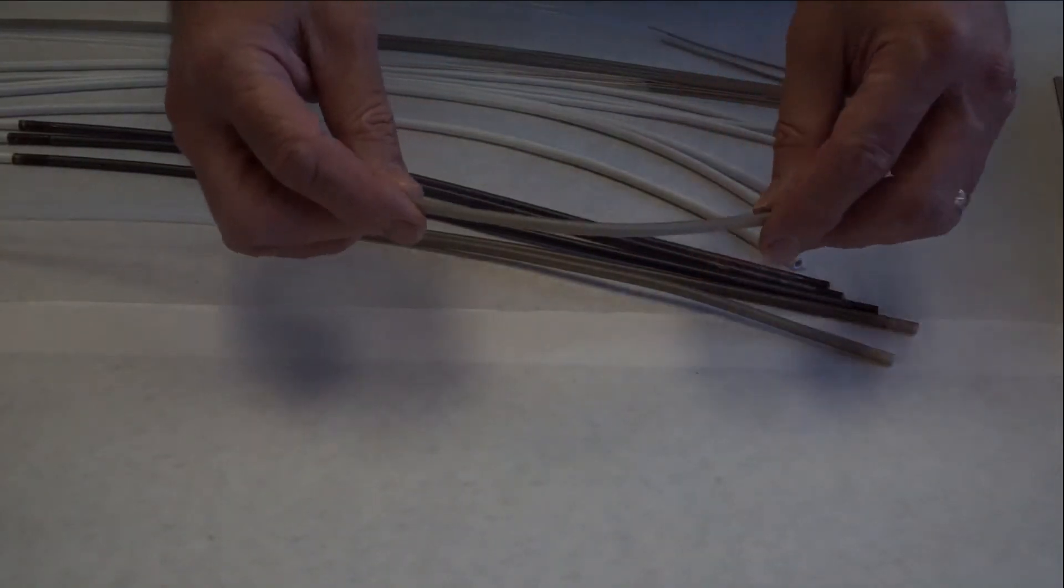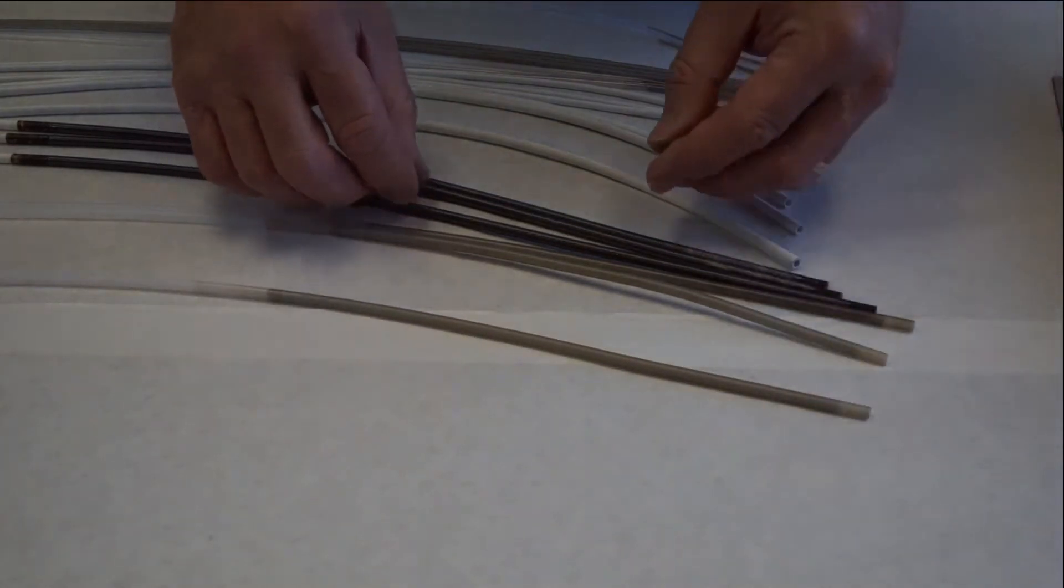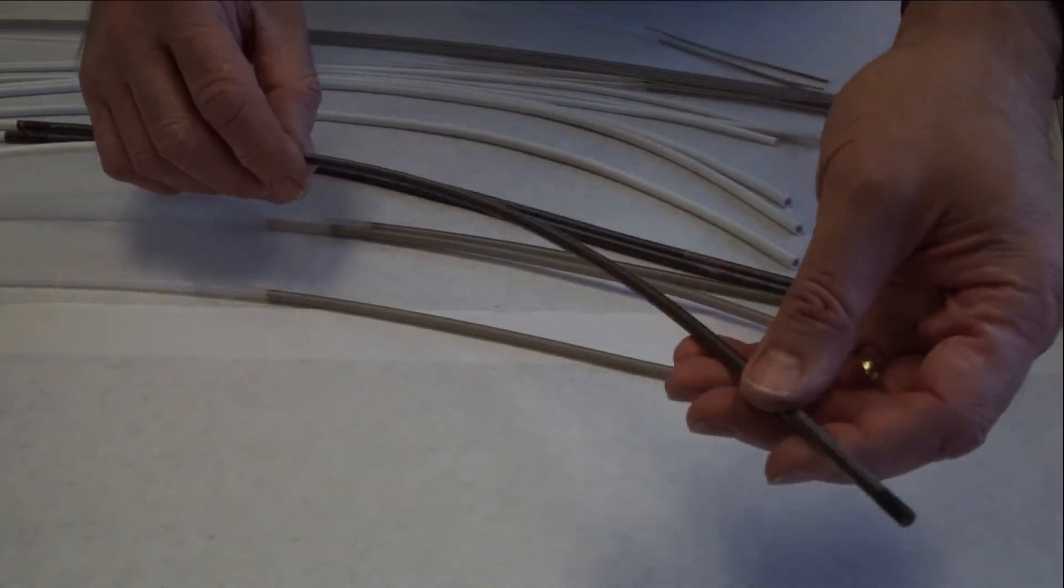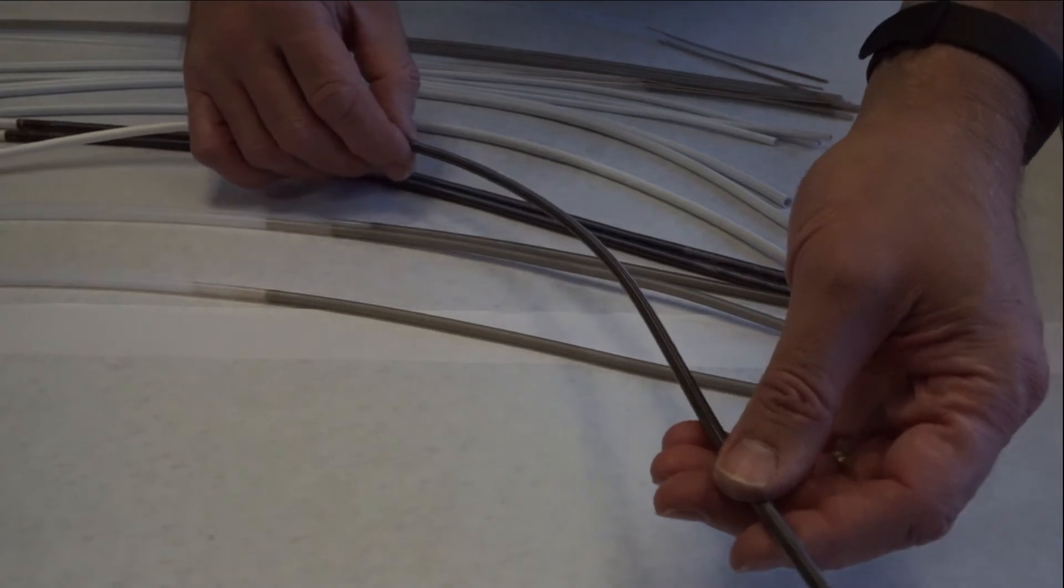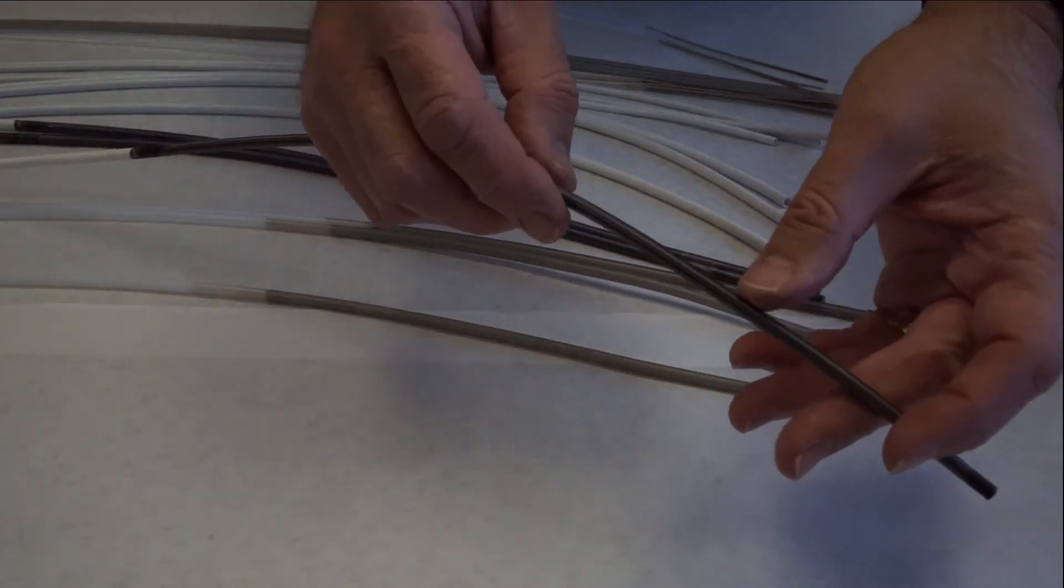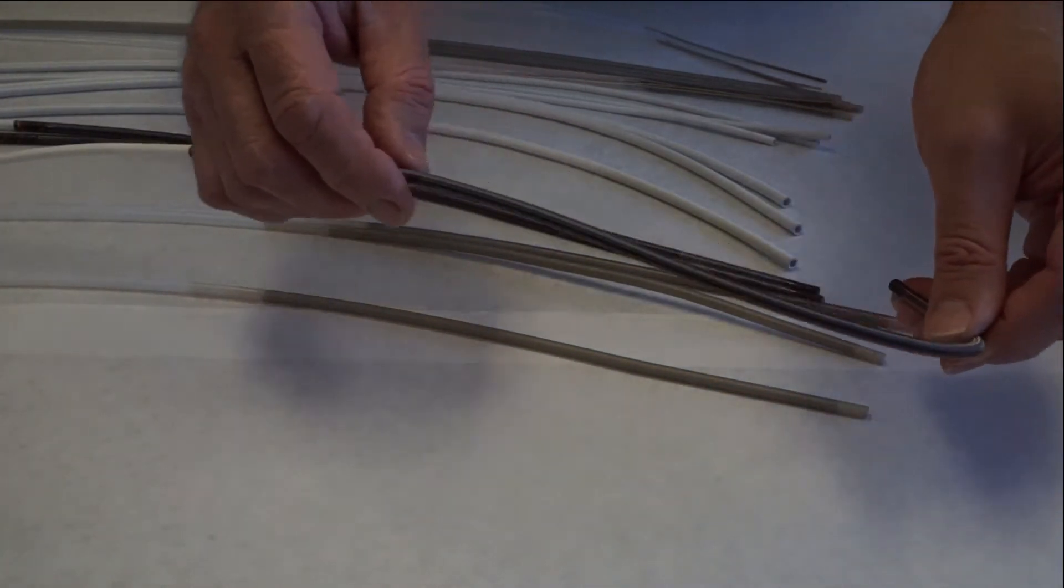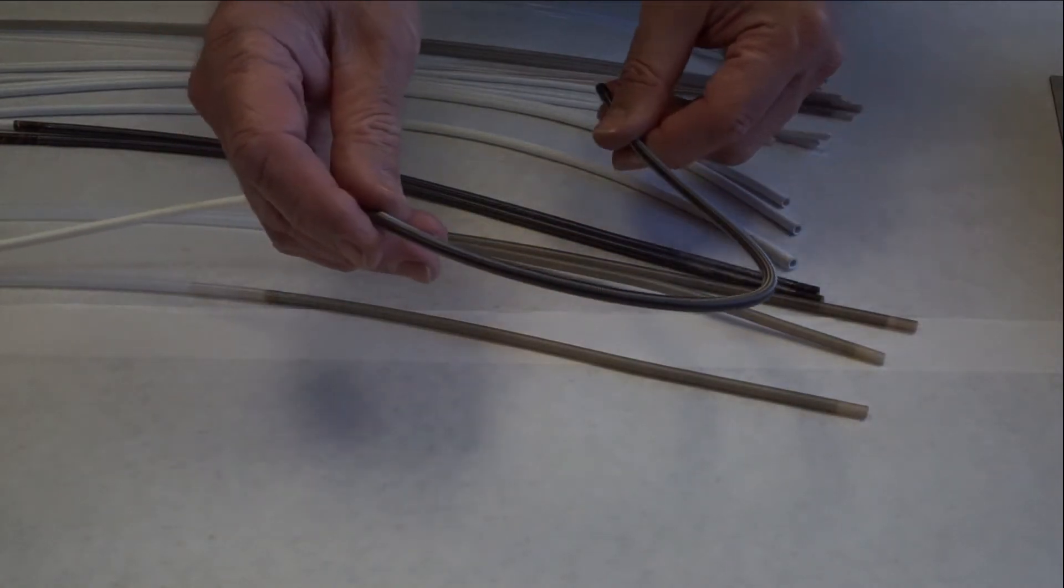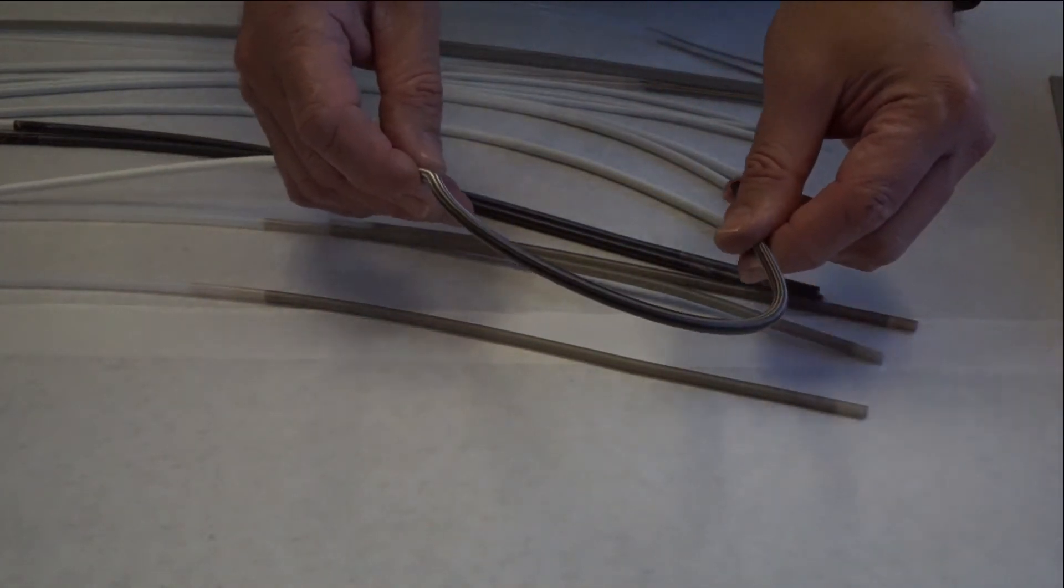Our second channel variant is our two-layer 400mm wire wrap channel. It is very similar to the flexibility of the OEM channel except it has a 400mm wire wrap to prevent it from being deformed in the bending section and kinked behind the coil pipe mount.